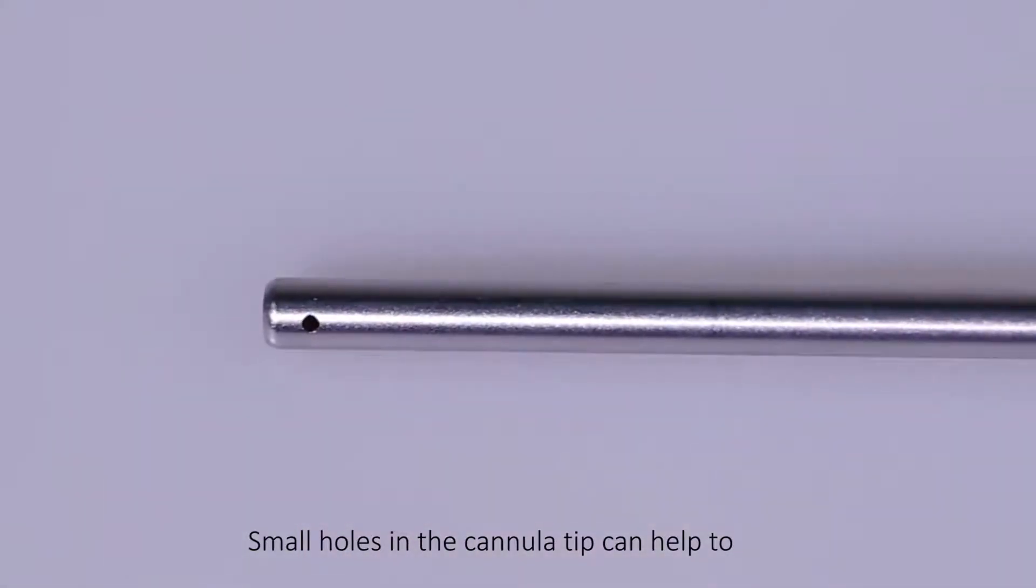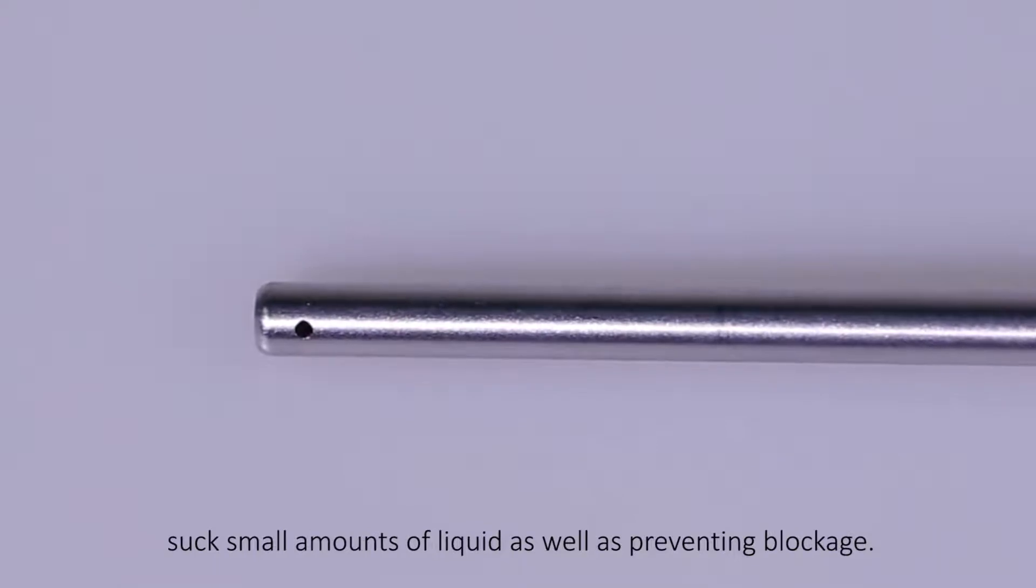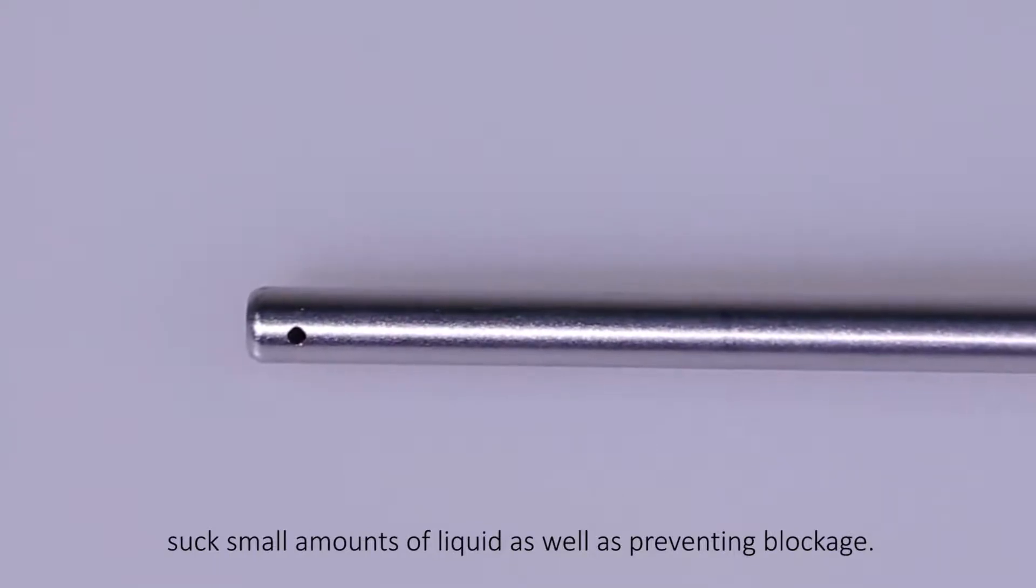Small holes in the cannula tip can help to suck small amounts of liquid as well as preventing blockage.